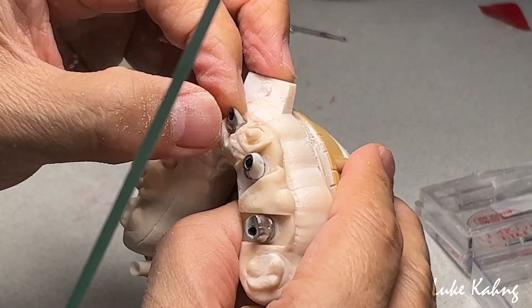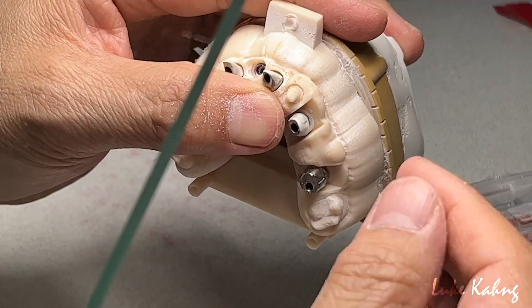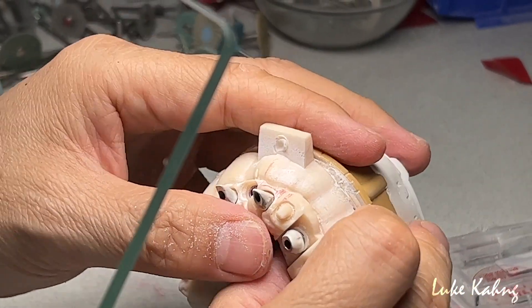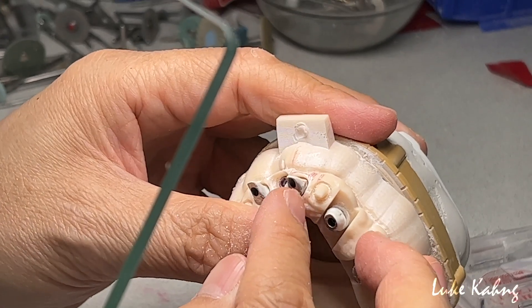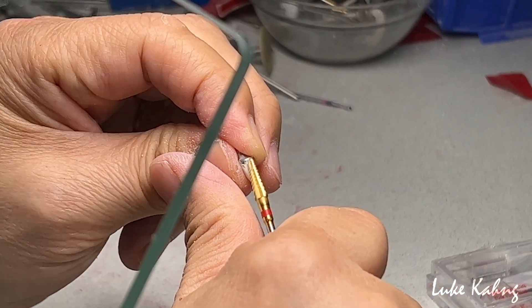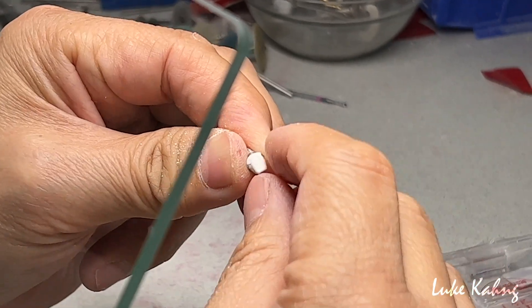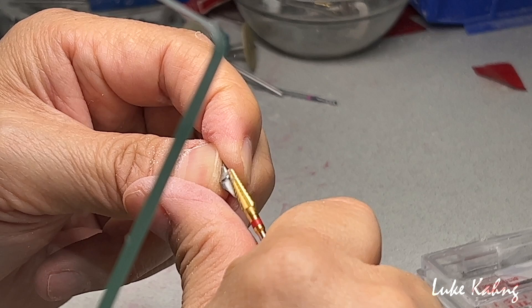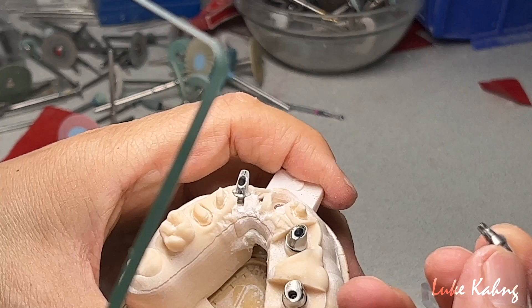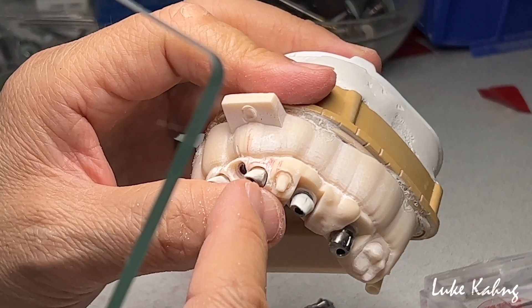I'm kind of frustrated. Paid a lot of money for this, and then I have to redesign it. Looks like they don't know how to do it — sorry about that, but I have to mention it. So I have to trim everything. I think we have a little bit more room compared to what we needed, and I'm trying to give them a slightly better shape. What I care about is the finer aesthetics.